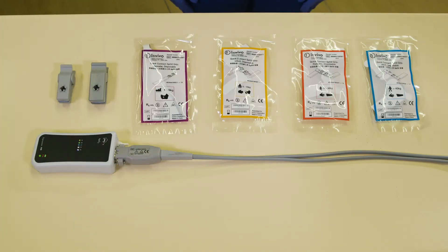Before placing the SPO2 module on the patient, choose which attachment you would like to use. There are reusable clips and disposable grips. If you decide to use the disposable grip, be sure to select the appropriate size. There is a neonate and adult disposable grip, as well as infant and pediatric.